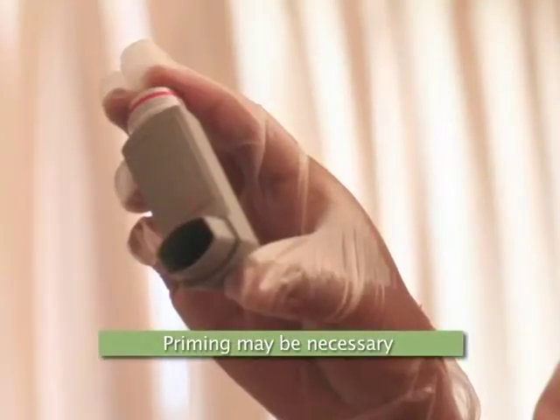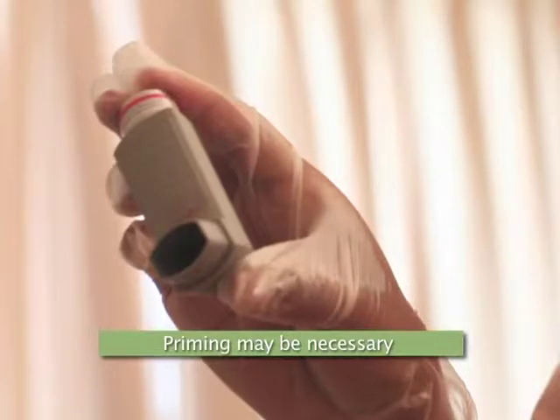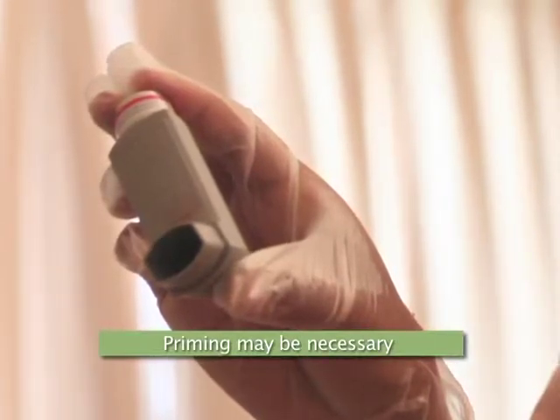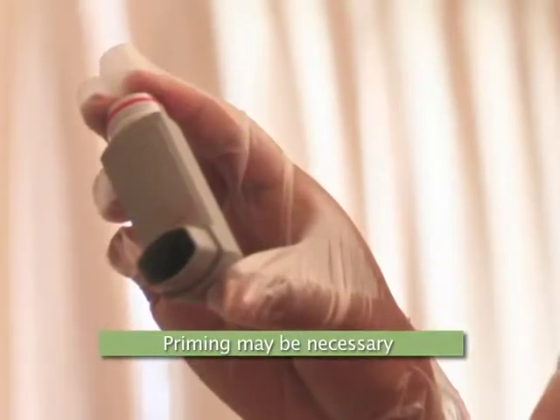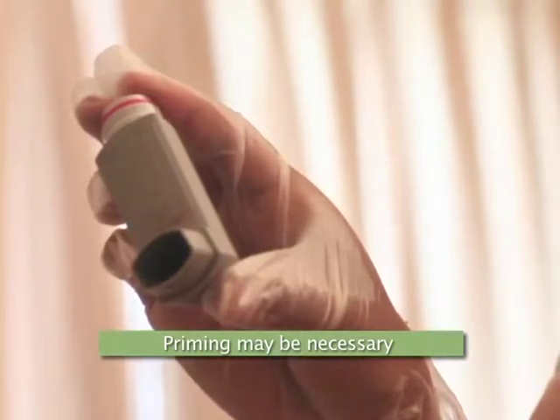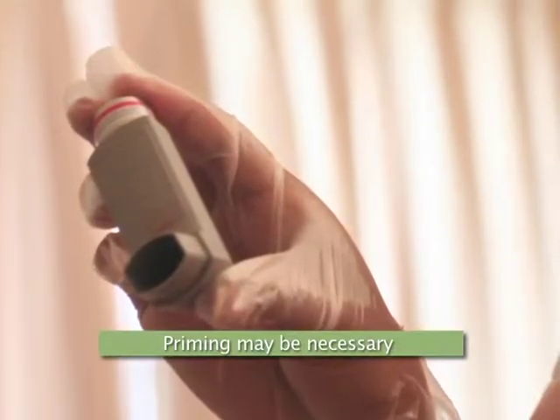Keep in mind that if the inhaler is new and has not been opened, or it hasn't been used for several days, the inhaler may need to be primed. Priming simply means spraying the inhaler into the air a few times to ensure that medication is coming out and the device is working. Be sure to spray the inhaler away from the eyes and face. Specific priming procedures for each inhaler are included in the package insert.